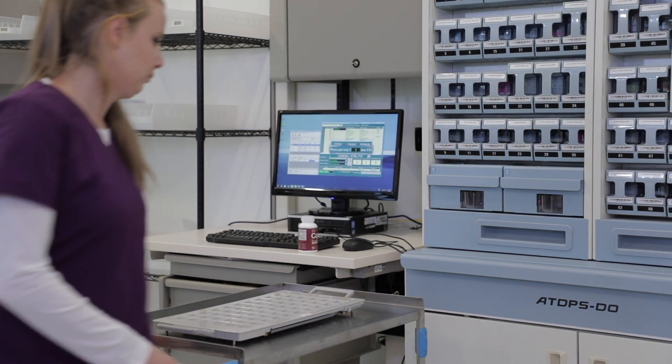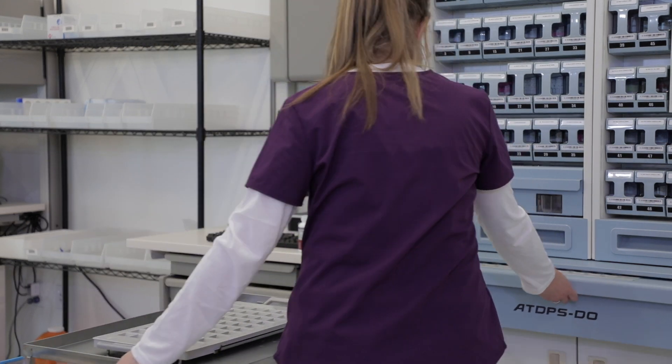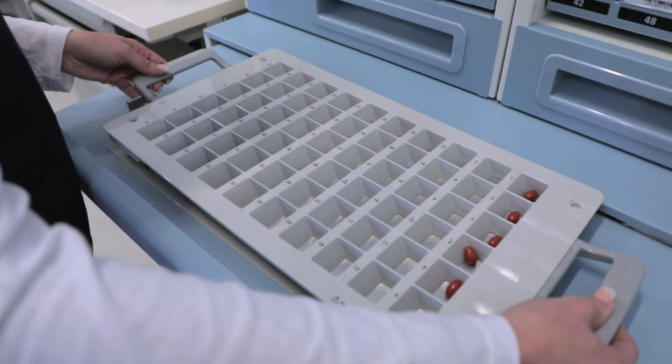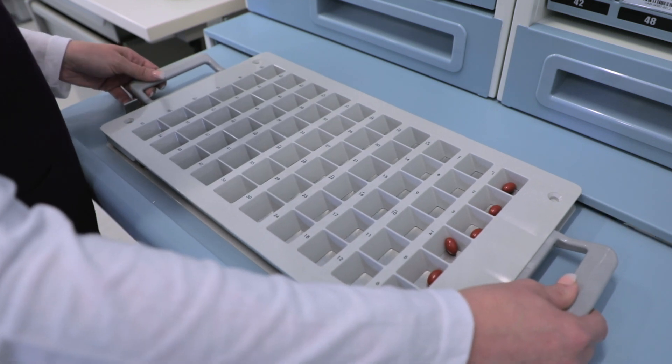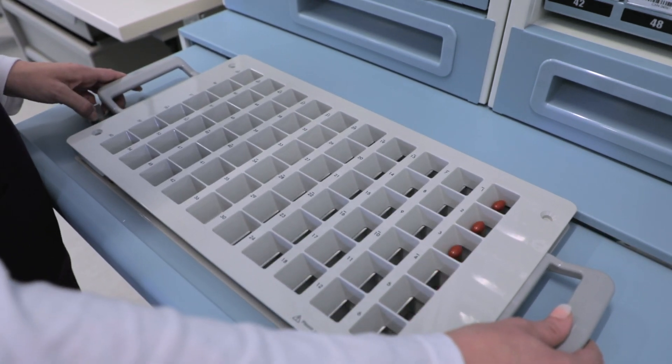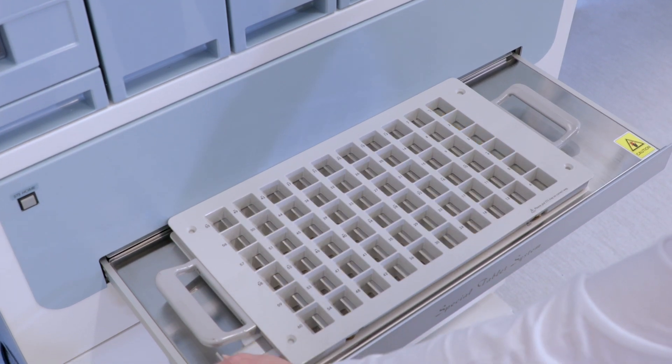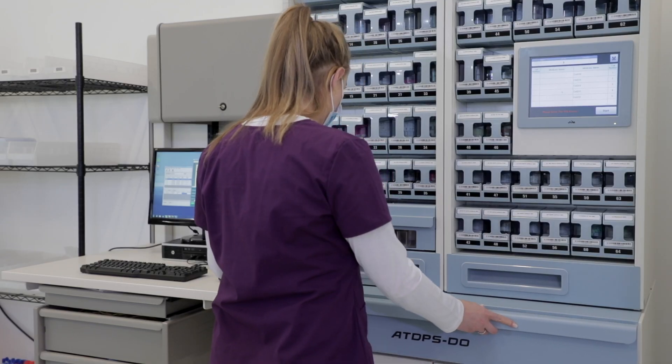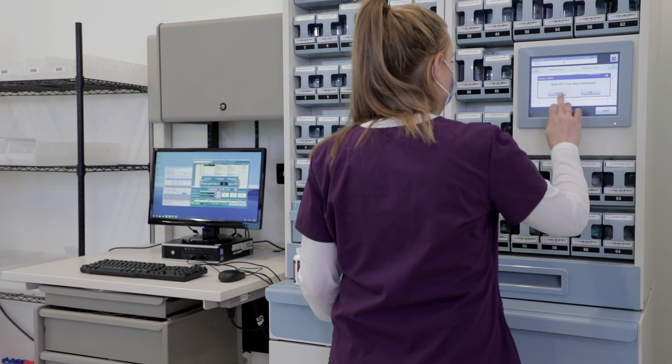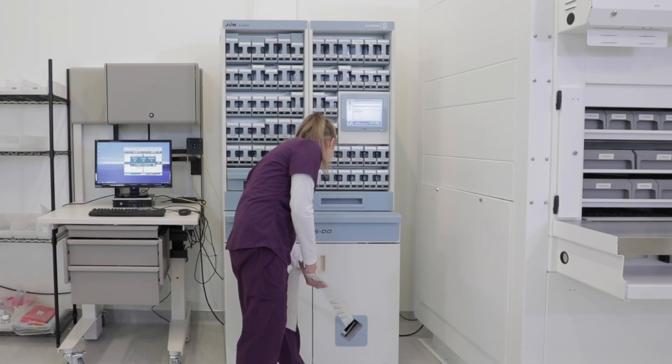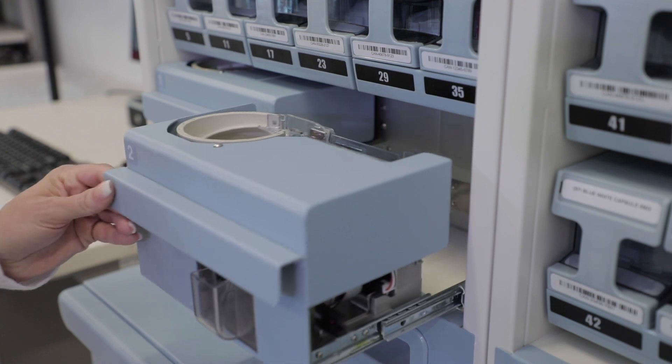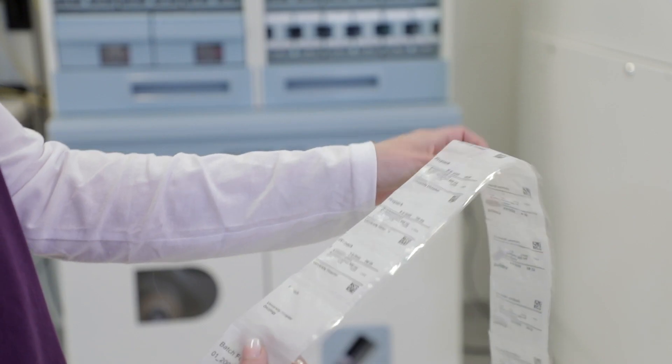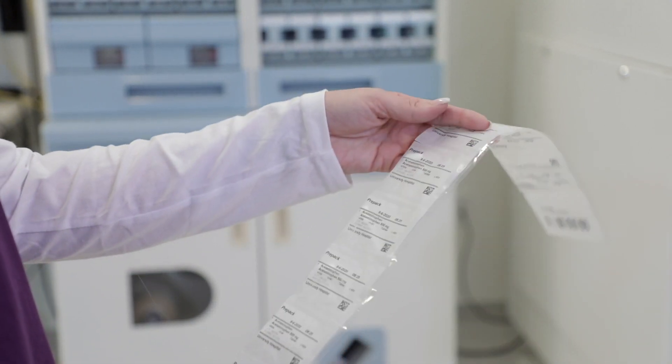When the STS tray is open, the user places the STS sub-tray onto the STS tray. The user simply pulls the spring-loaded handle to drop the tablets into the STS tray. The user then sets the sub-tray aside and continues the packaging process. These AutoPak capabilities provide you with automated, flexible packaging options and support more efficient staff utilization, allowing for better patient care.